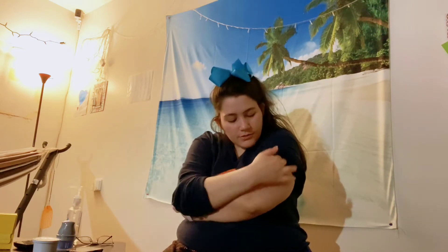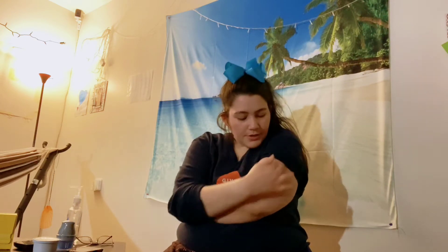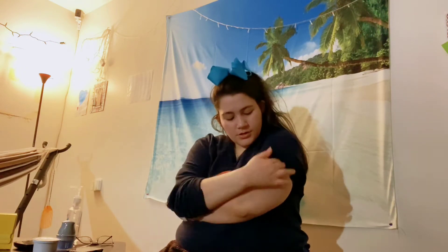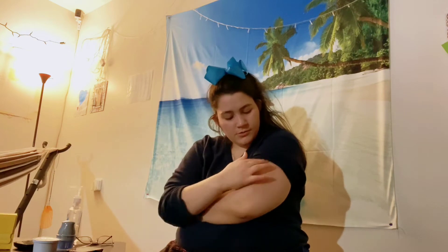I'm going to be using my right arm. You're going to wipe down the area where you'd like to put the sensor, and then you've got to let it dry.